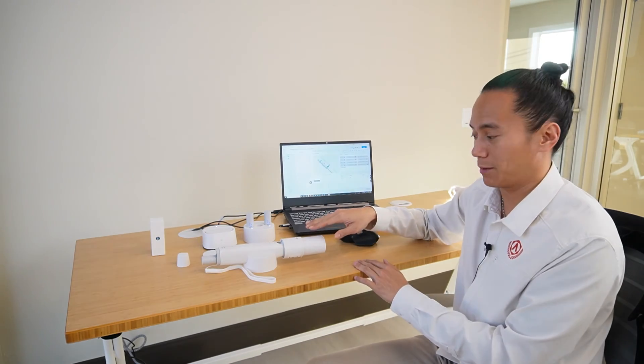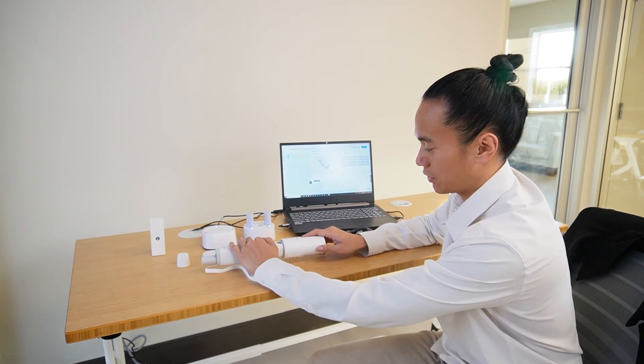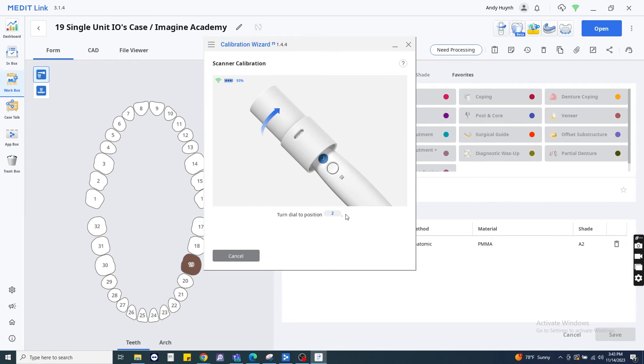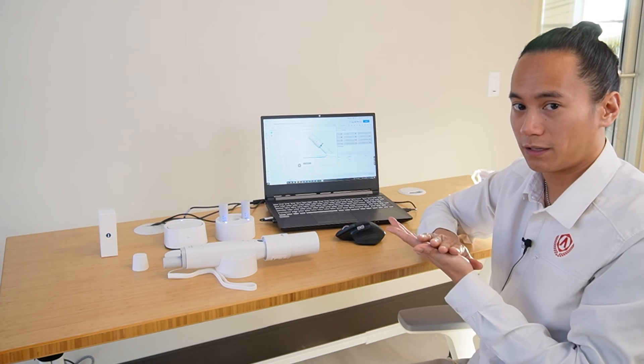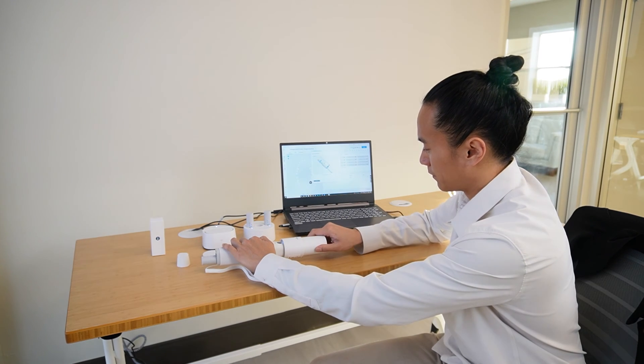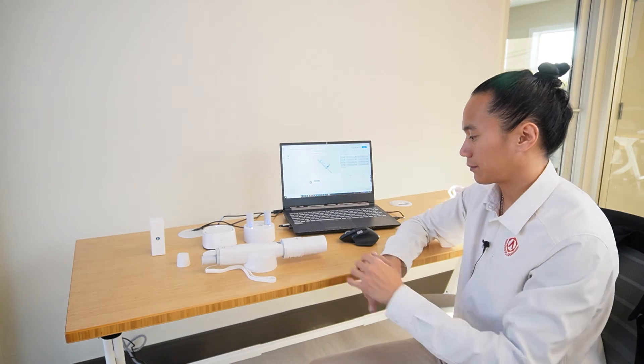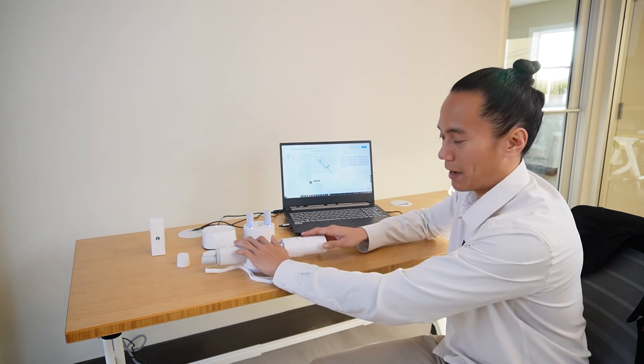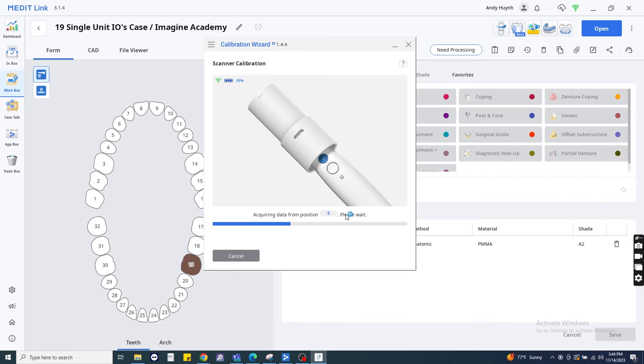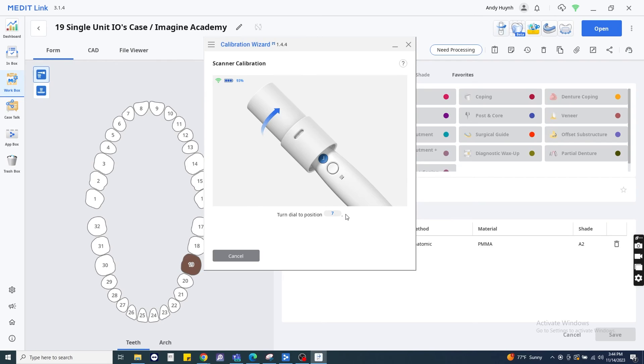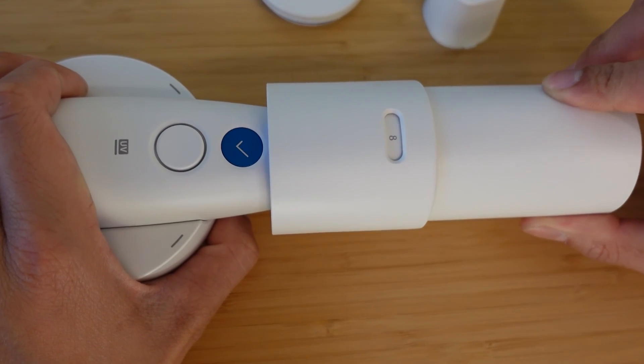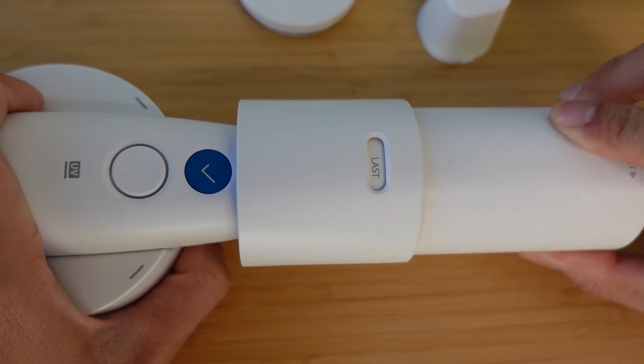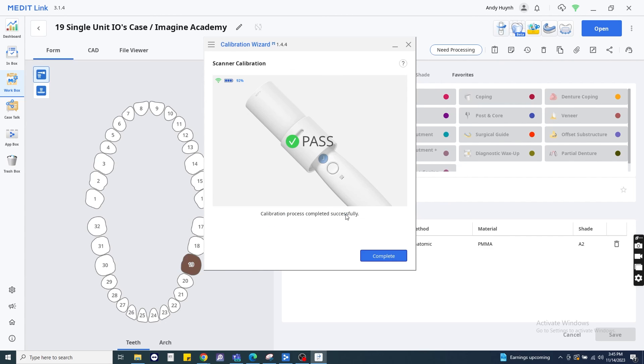I'm going to put one hand on the scanner here and start turning the dial. We're going to see on the calibration wizard that it reads turn to position two, three, etc. You're going to hear a firm click at the end of each position, and you're going to wait until the calibration wizard reads the next number before you turn it. Here we're at dial position four. Each position calibrates in about a few seconds. I'm going to turn to position six, seven, eight, and then the last position will be marked last. All in all, the calibration process will just take a few minutes. From there, we're ready to scan our first case.